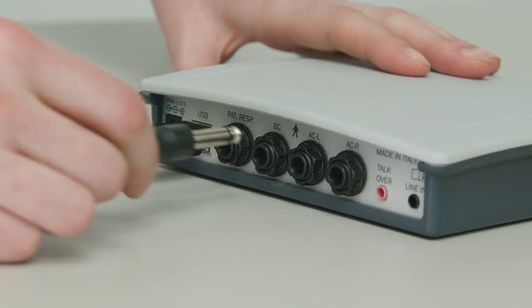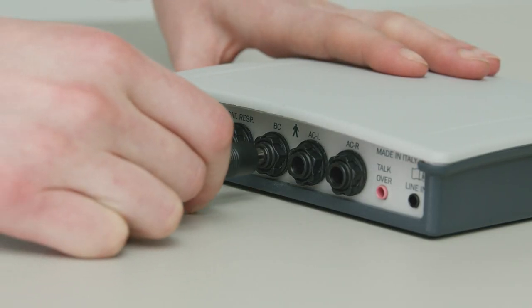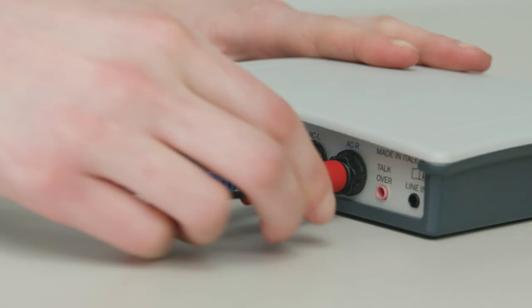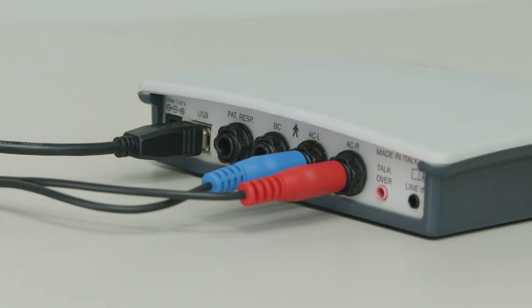Piccolo basic can perform pure tone audiometry by air conduction testing only, while plus can conduct bone conduction testing. Piccolo speech is the most comprehensive portable audiometer in the range. It additionally carries out speech audiometry by AC and BC testing.